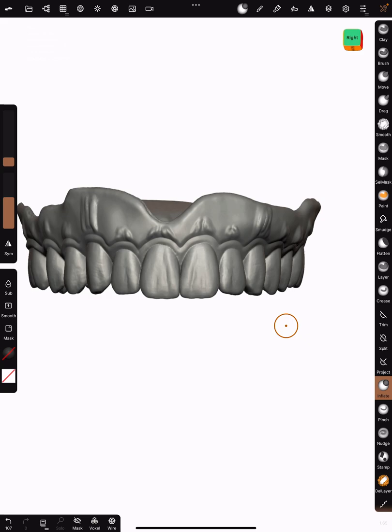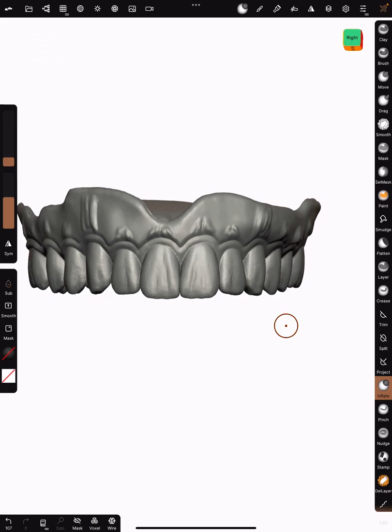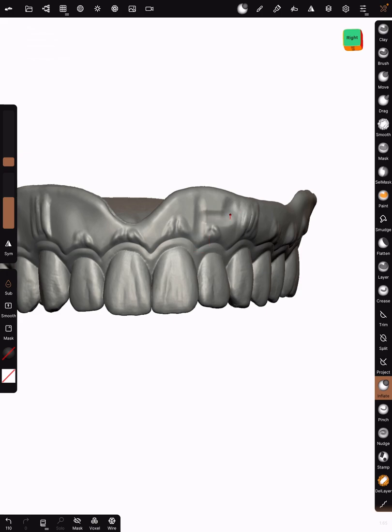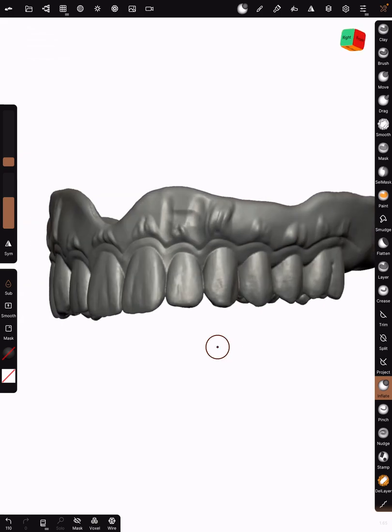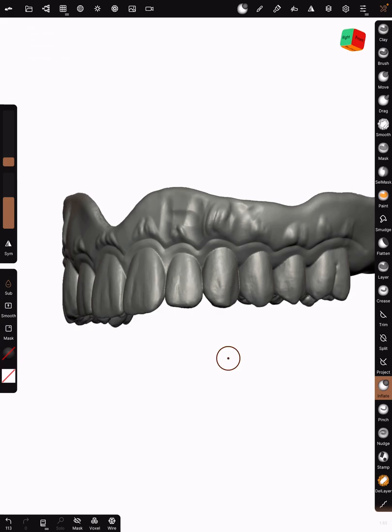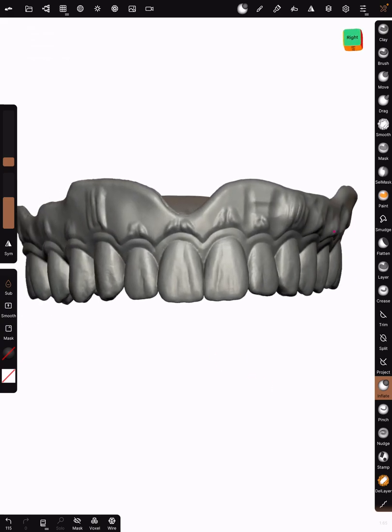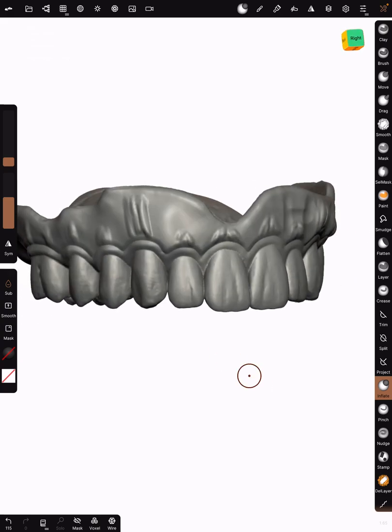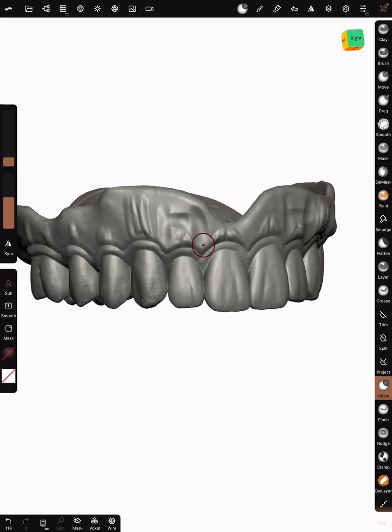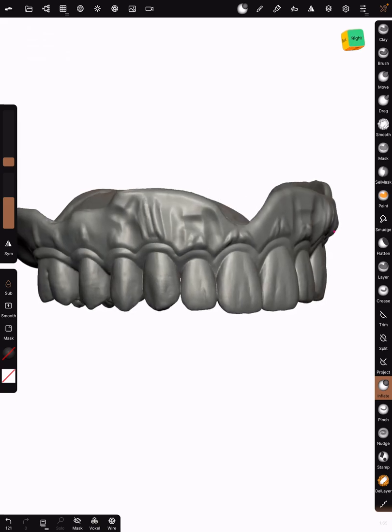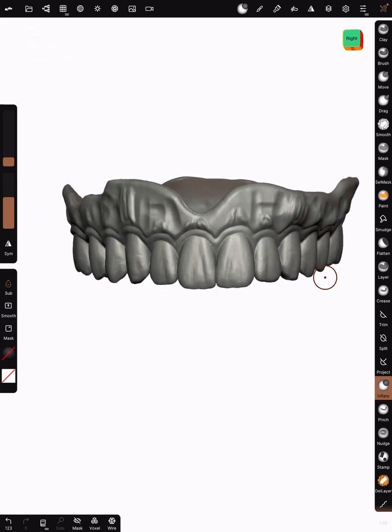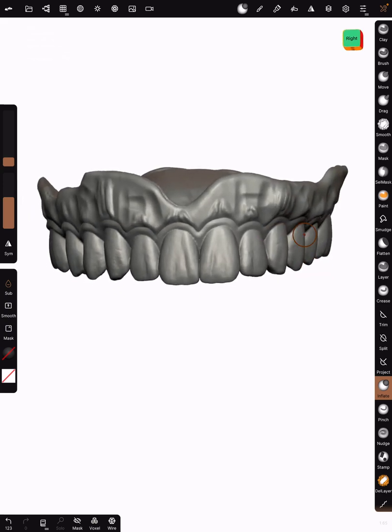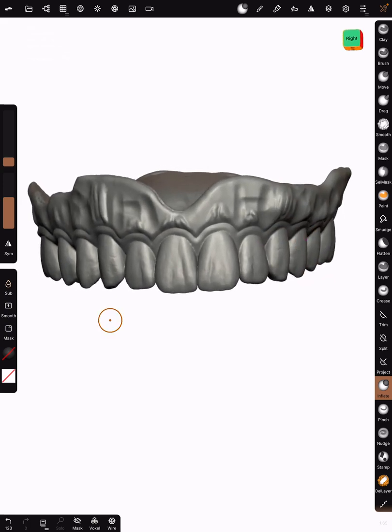Hit the little subtract button right here, you see the little teardrop subtract. We're going to make an H starting here, cross, and then here, that was an H. Here we're going to do a Y, one, two, three. And then we're just going to do lines here. So once again, an H, a Y, and then just some lines there. That's looking gnarly. Let's go ahead now and take the subtract off. Hit the teardrop, make sure it's off, and go to smooth.